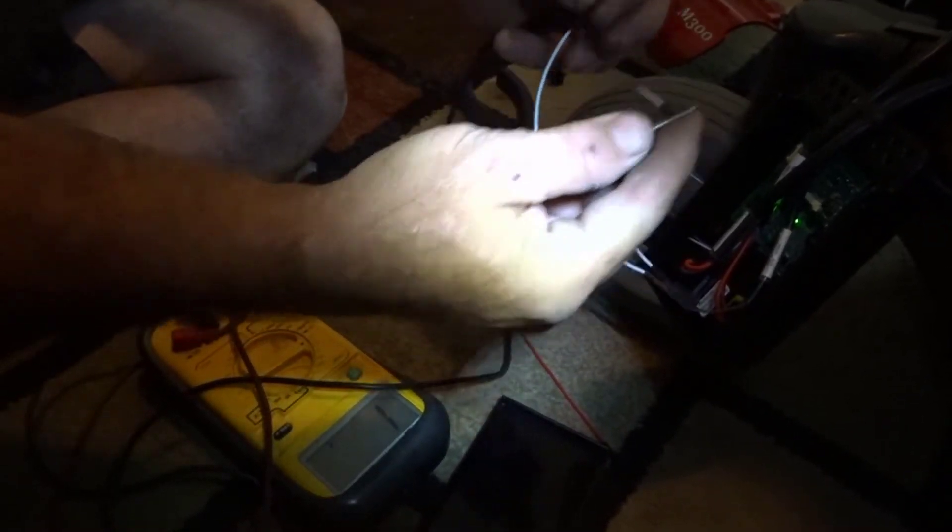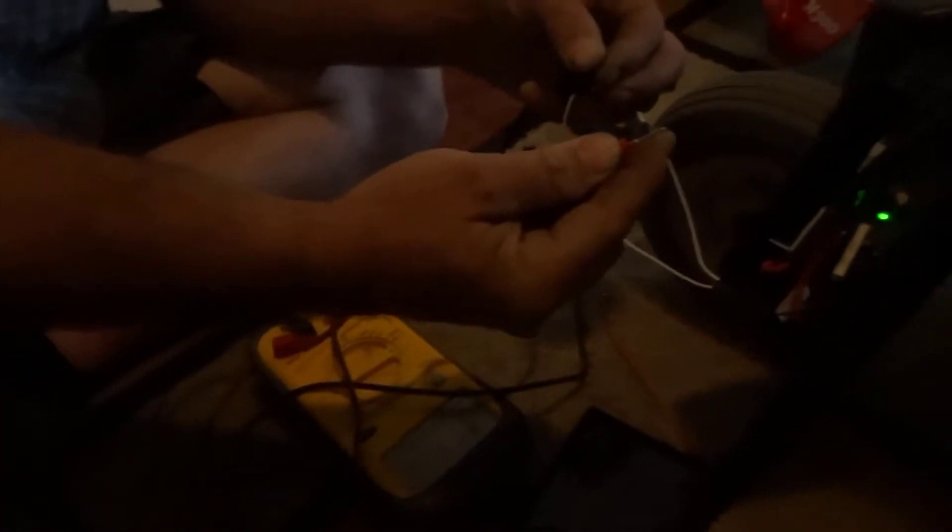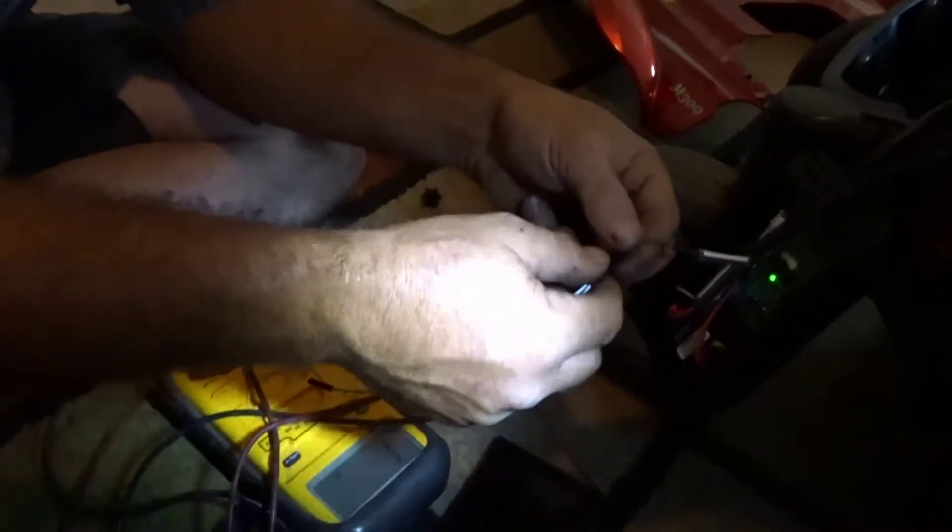Toggle that switch. It's like nothing — we can hardly ever get it to leave turtle mode. So that switch must have taken a dump, or the wiring is bad. Most likely the switch.